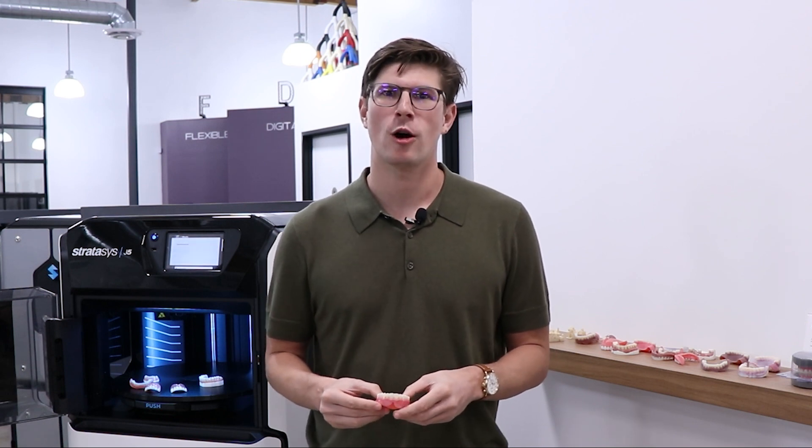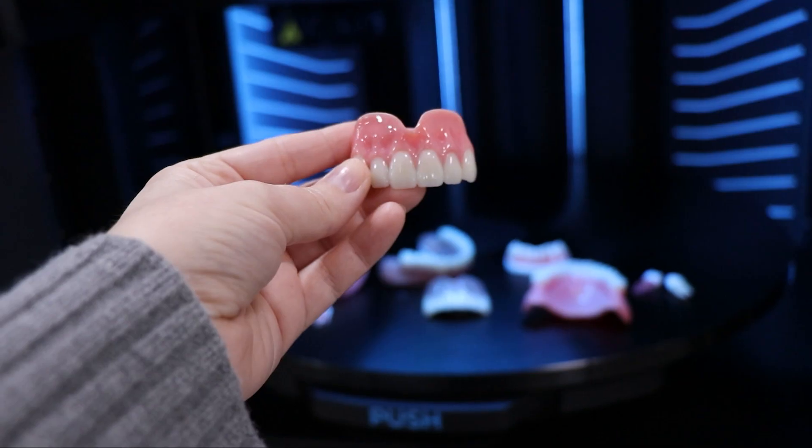I'm Hudson from Purple Platypus and today on 30 on 3D we're going over how to add full color to your dental models quickly and easily in GrabCAD print.